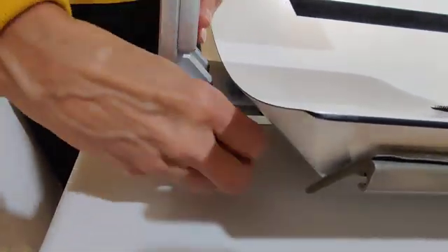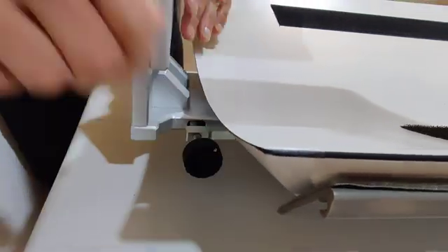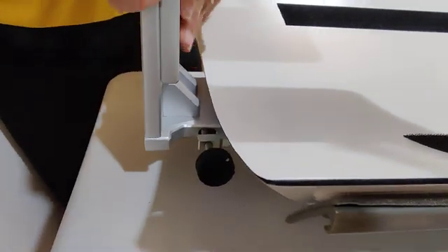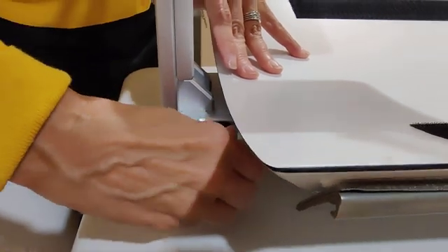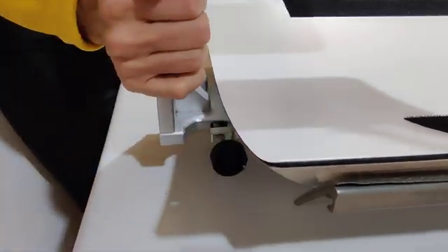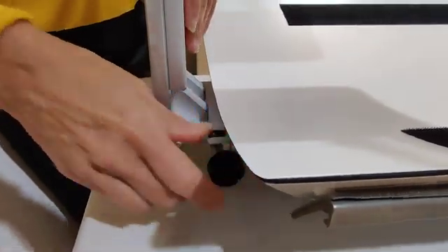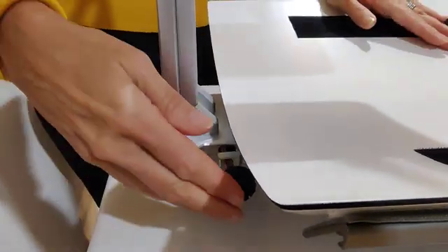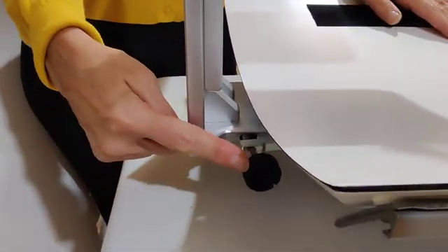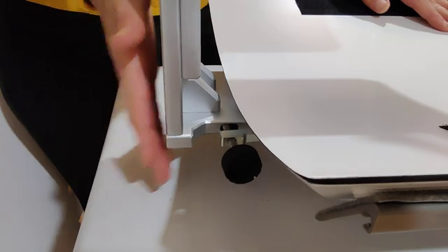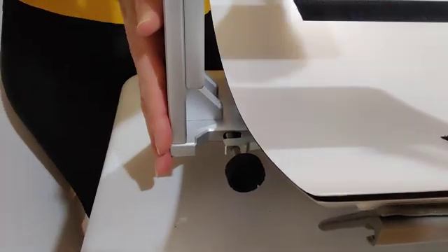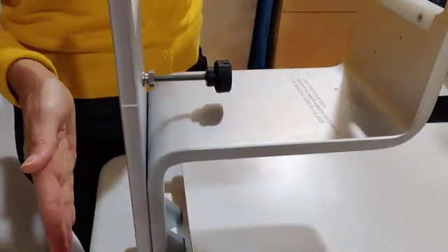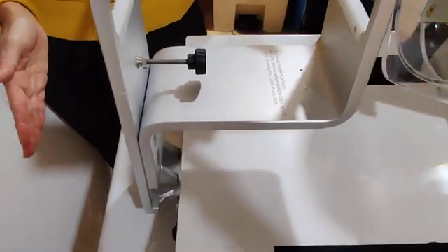See how it's sloppy right now? There we go. Okay, so slide it in. This is the only knob on this holder that I want you to ever touch. Don't touch this knob, don't touch the knobs on the actual phantoms.